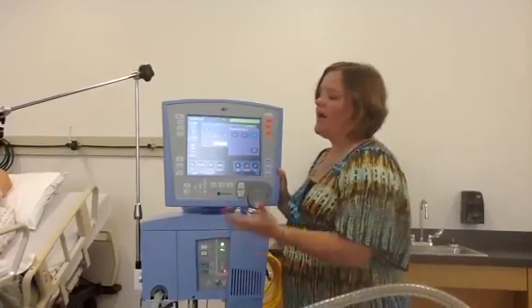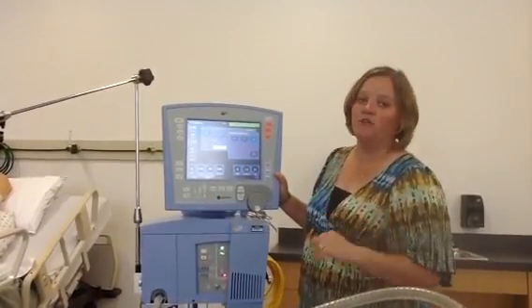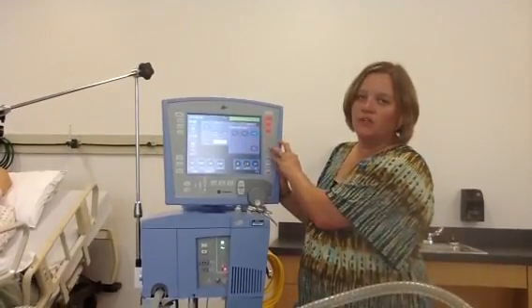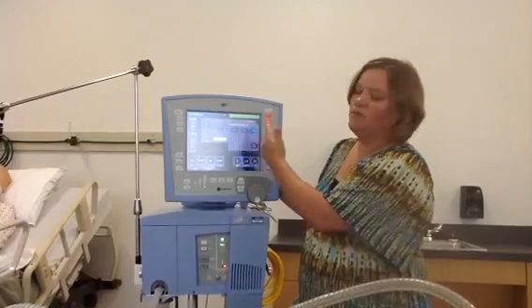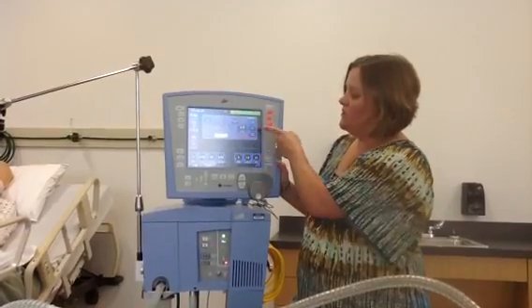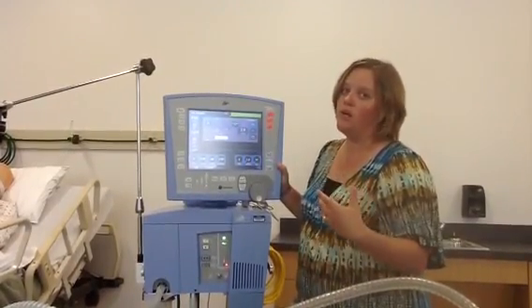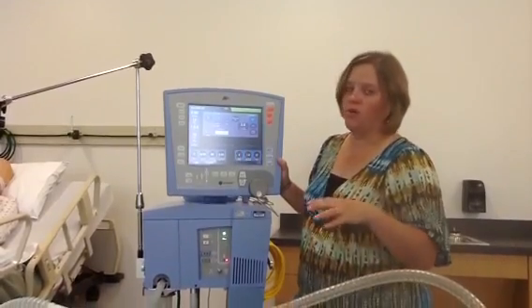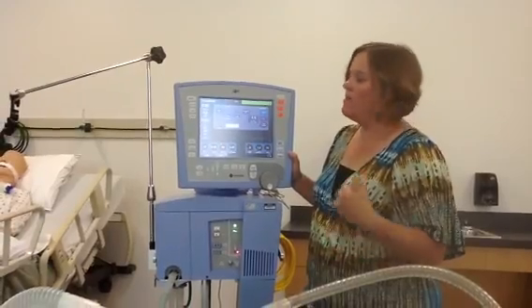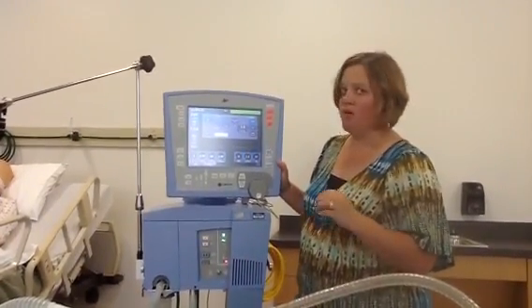This setup button takes you back to the initial setup. Before you ever put a patient on a ventilator, you always want to make sure you select your size. The AVEA ventilator covers all three sizes: neonatal, pediatric, and adult. Once you select the size, you can run the extended self-test, which helps confirm the ventilator is working properly. You also have the ability for automatic airway compensation and other settings covered in a more extensive video.